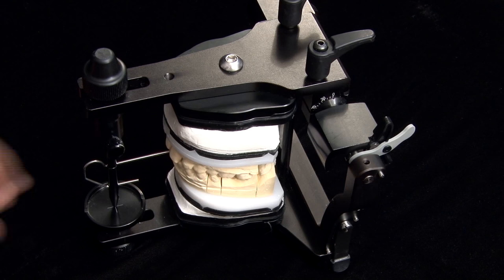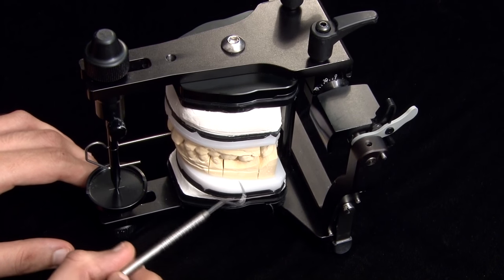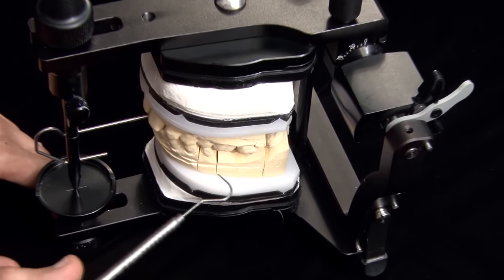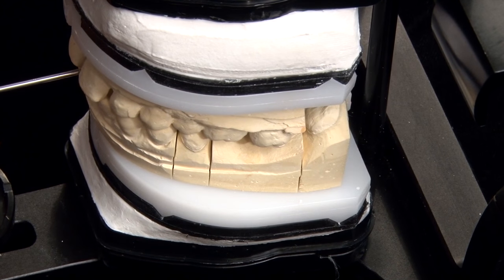Hello everybody, welcome to Illusion Training and Education. I am Dr. Mahesh Javani and today I am going to talk about the rule of 27. I am going to show you this case from one of our doctors who has prescribed a 4-unit Zirconia bridge in the lower left quadrant, that is from the 3.5 to the 3.8.